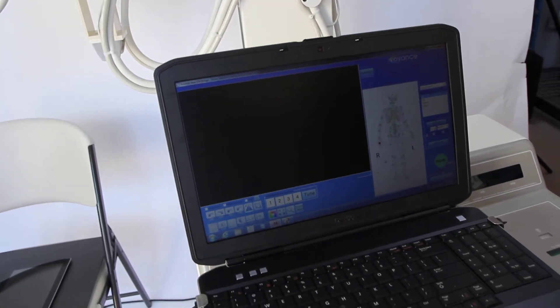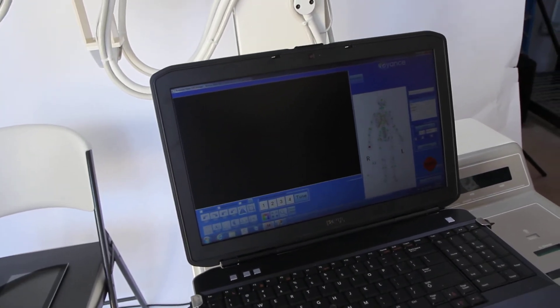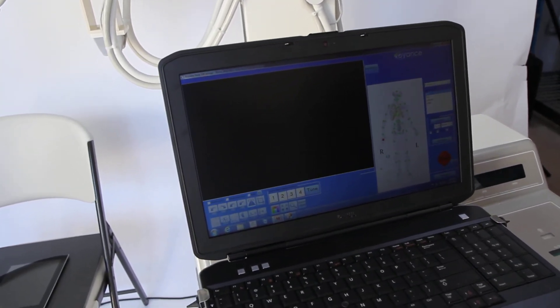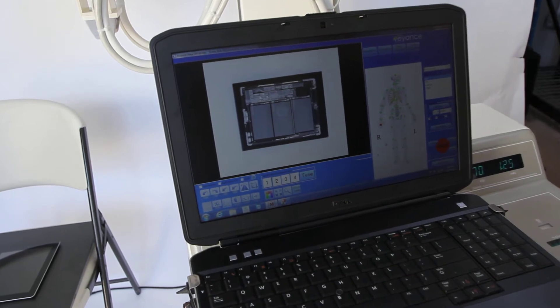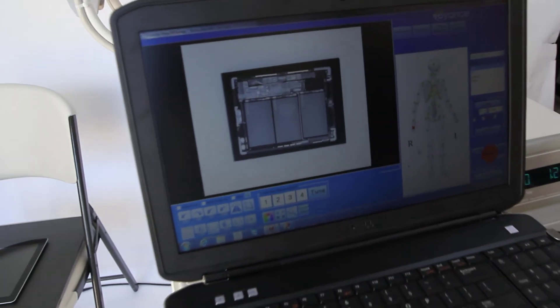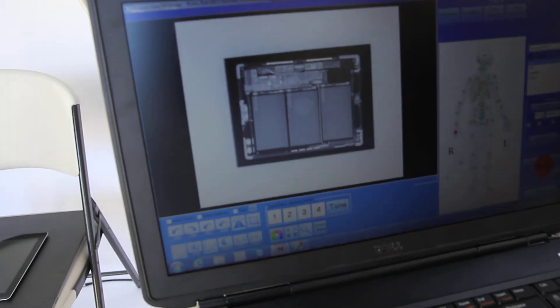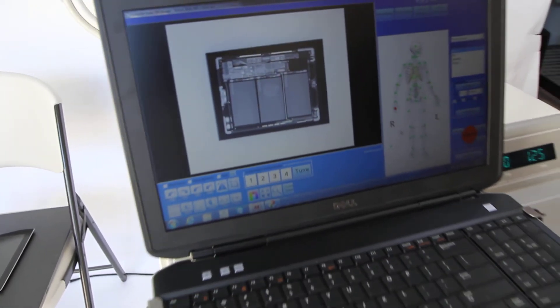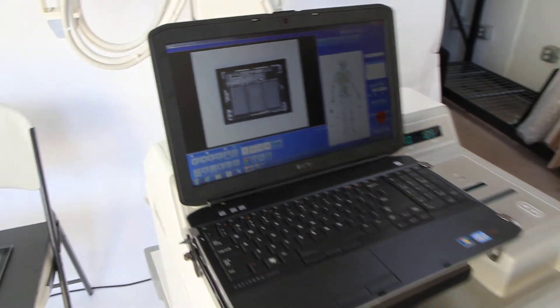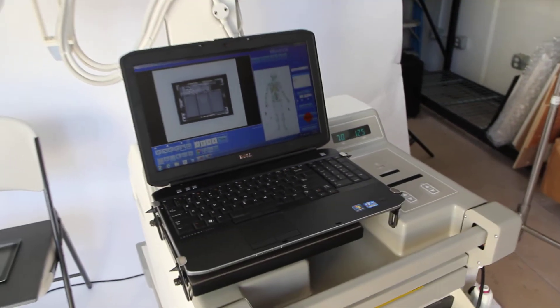X-ray has been taken, image is coming across to the software. Right now the software is trying to apply the algorithm set for that image to make it look as good as it can. Image quality is outstanding on these new panels.